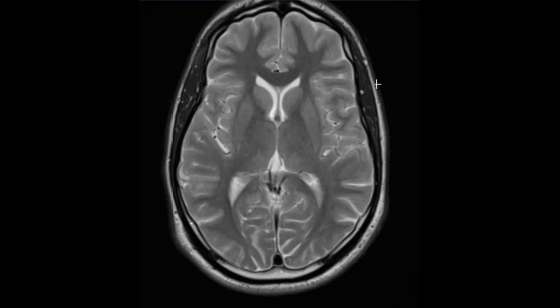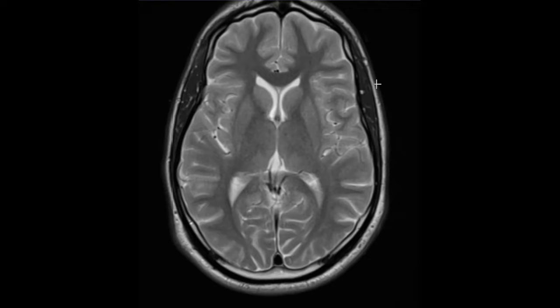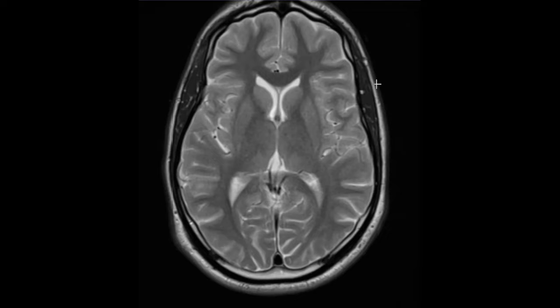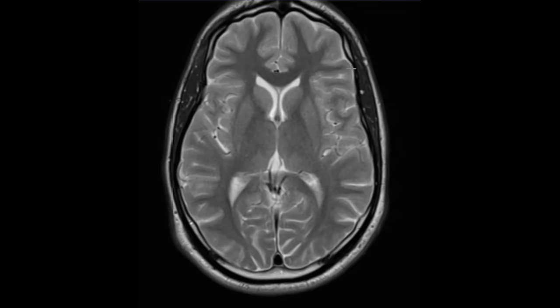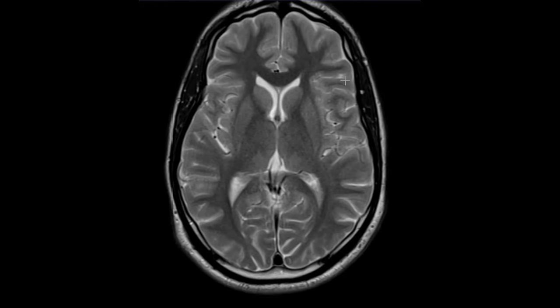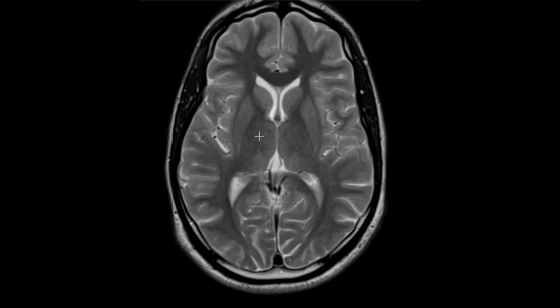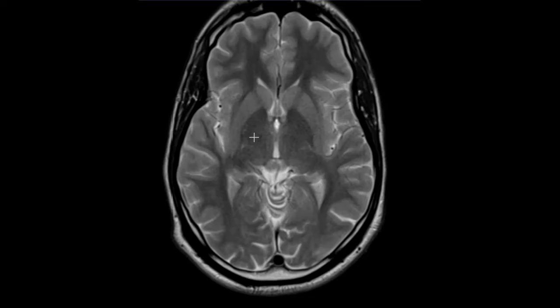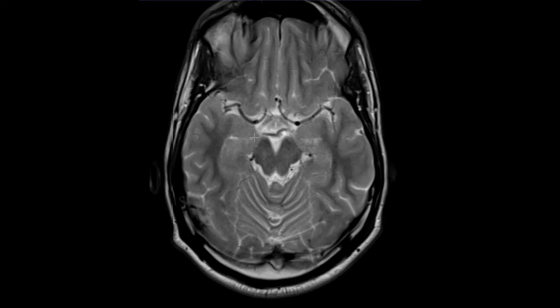Hello, this is Dr. Gay from Forsythic MRI. This is a 25-year-old gentleman who had some nonspecific neurological complaints. He had an MRI of his brain, which thankfully is normal, but he had a couple of findings that simulate disease.